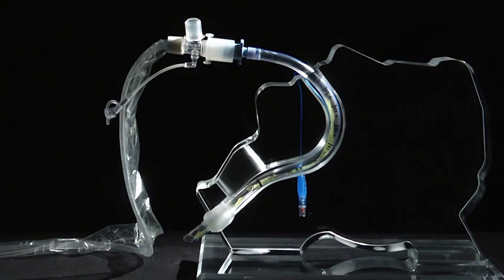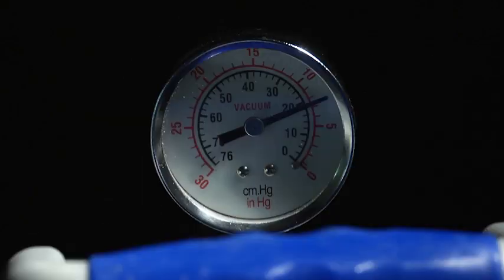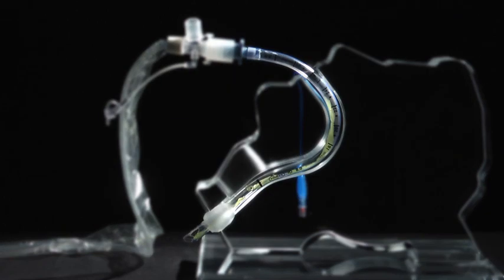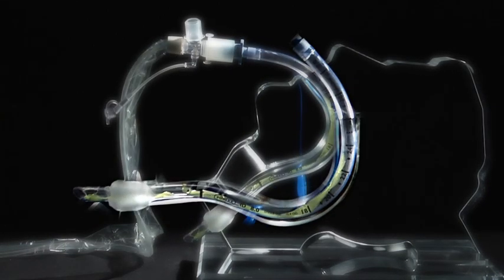What you see is a standard closed suction setup at 180 millimeters of mercury. Synthetic pulmonary-like secretions have been inserted into the endotracheal tube.